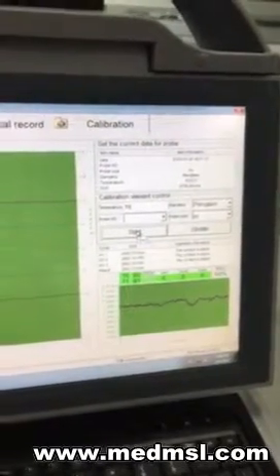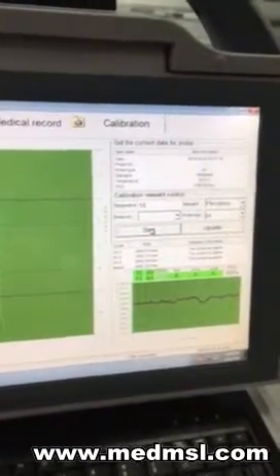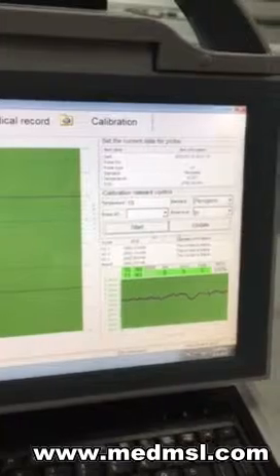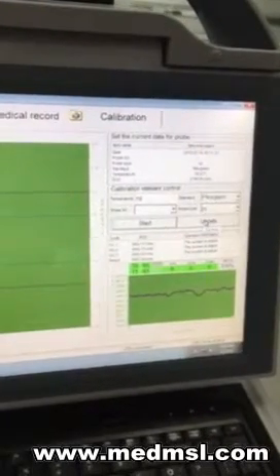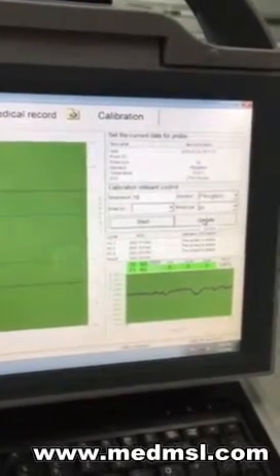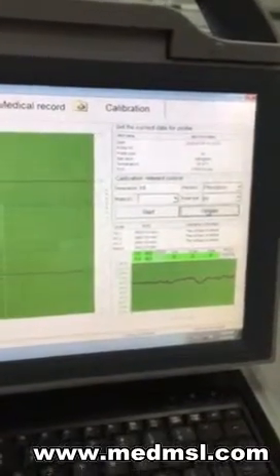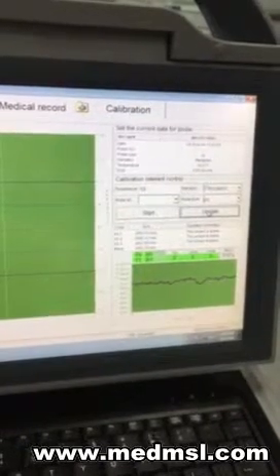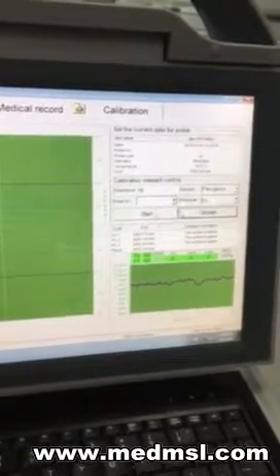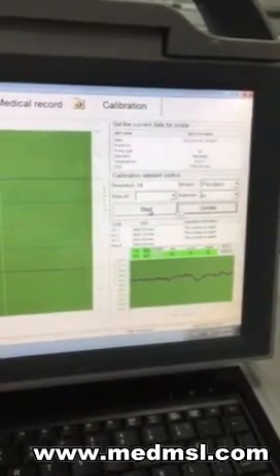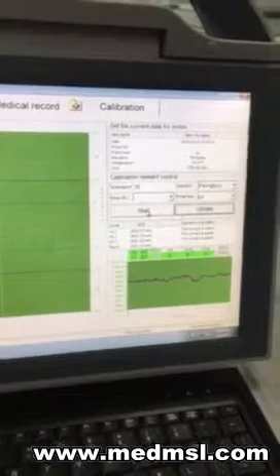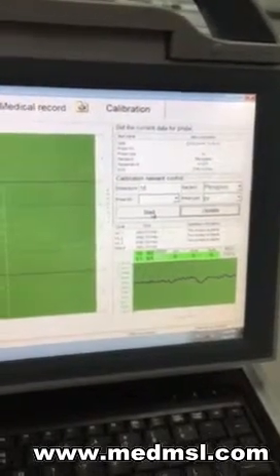When it shows 100 percent, the calibration is finished. Click Update to update the probe date. Okay, now it's finished, the calibration.